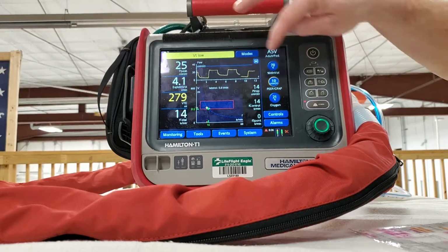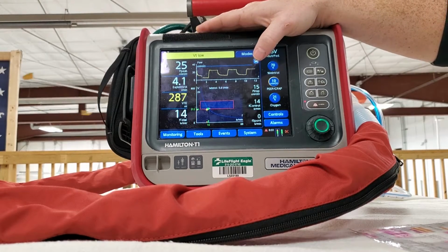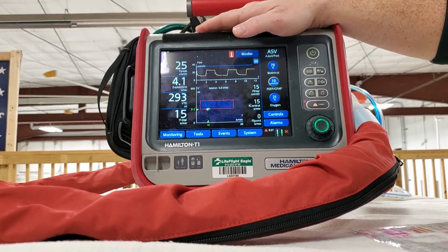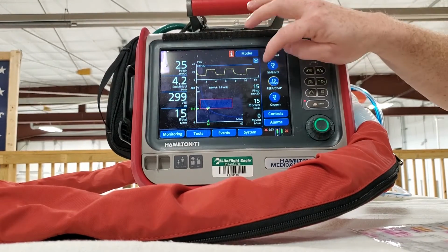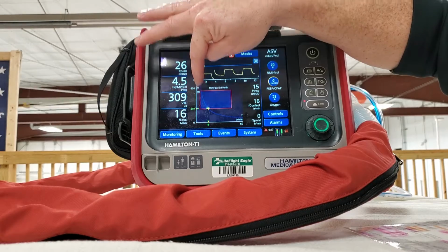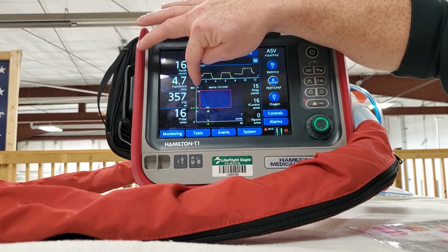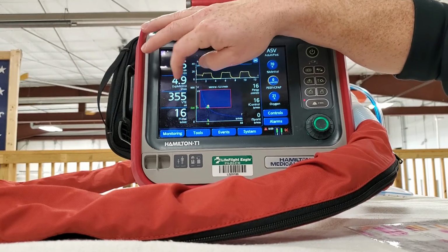Now look how I changed PEEP there, and it changed my ability to give tidal volumes. Well, I increased the residual air in the lung at expiratory. So that makes sense that we're going to be able to give less tidal volume because there's more pressure in the lungs. Whereas if I just took all the PEEP off, you can see that now my box changed going vertically. So I have more room to give breaths, because there's not as much pressure being held in the lungs at the end of exhalation.